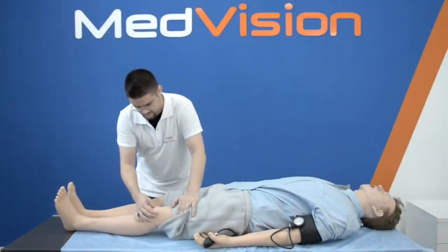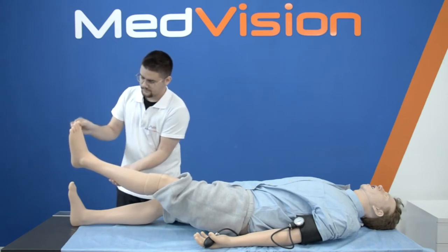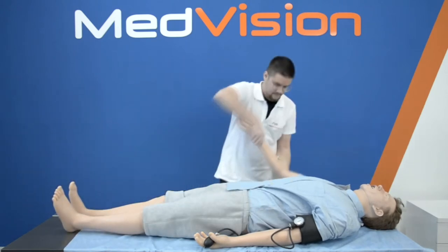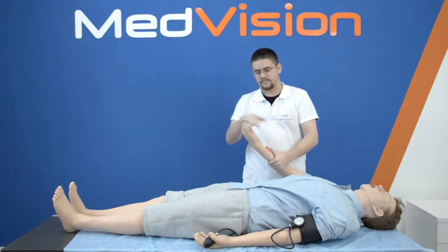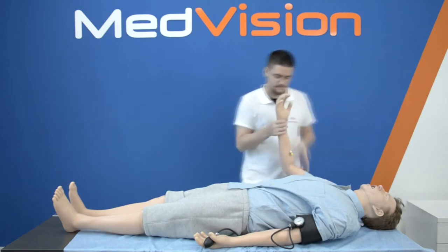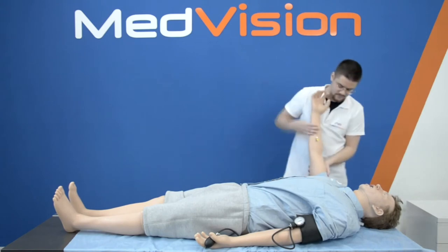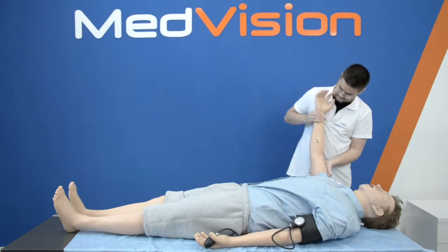Leonardo has realistic flexibility in all joints. MedVision pays attention to detail — you can see actual kneecaps, soft hands and fingers, skeleton structure, mushy muscles, palpable ribs, and soft skin. This is best experienced in a live demo. You can have Leo sit, put his arms behind his head, raise his knees, do prone position ventilation, and more. One of our valued clients wanted to simulate a patient having a stroke on the toilet — such a realistic and creative scenario illustrates the creative possibilities with Leonardo High Fidelity Patient Simulator by MedVision.